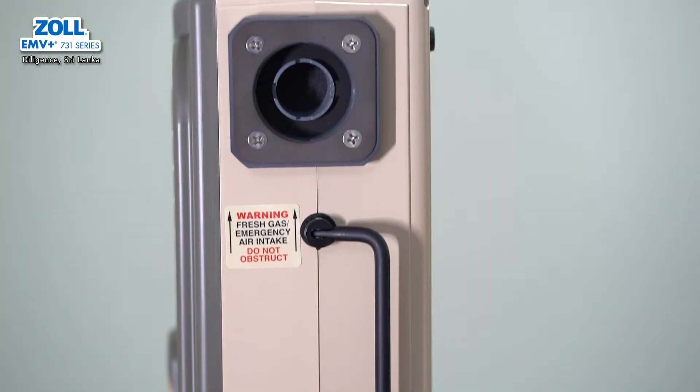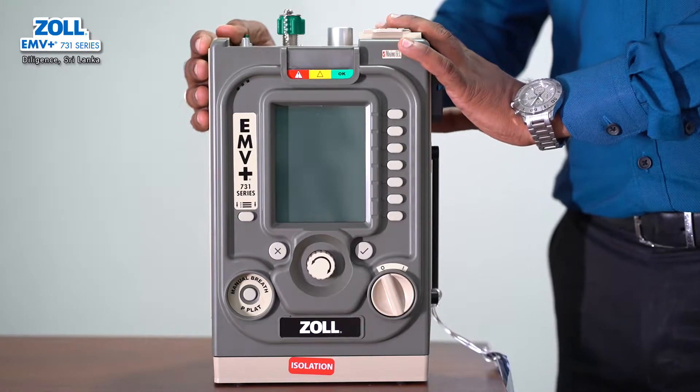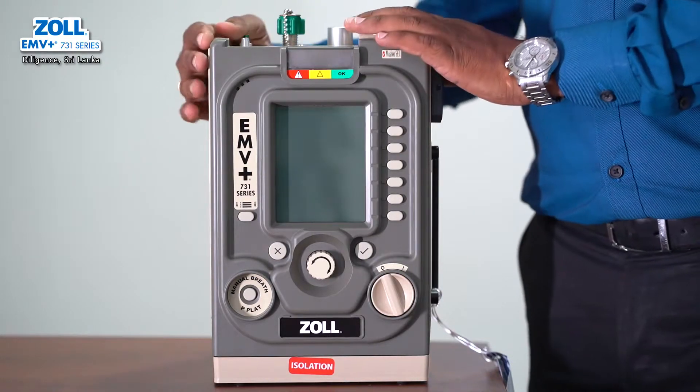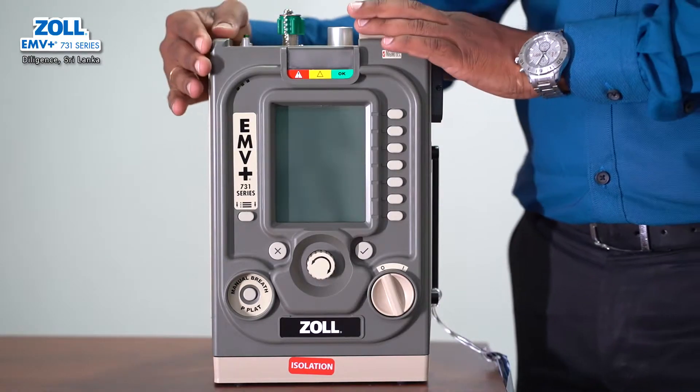For the first feature, I can use battery backup for 10 hours. You can charge it to 90% in 2 hours, and you can charge it to 100% in 4 hours.